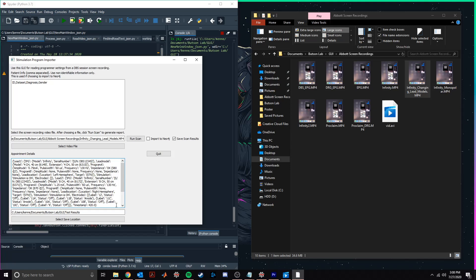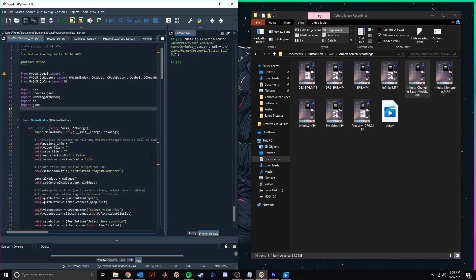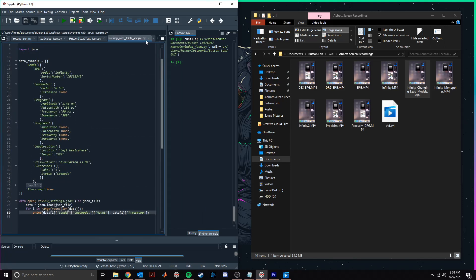Recorded device settings are stored as a JSON dictionary object, which can be difficult to visualize. In order to help illustrate how data is stored in the file, I've written a script that provides us with an example of the data structure, shown here in green text.